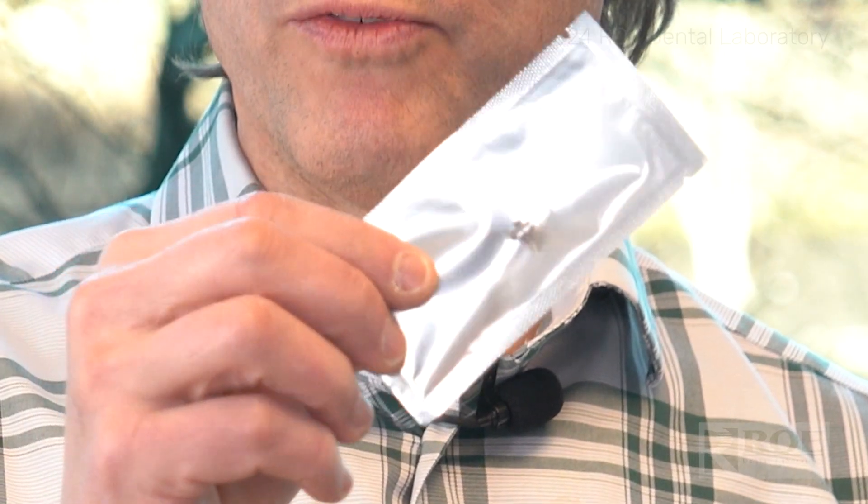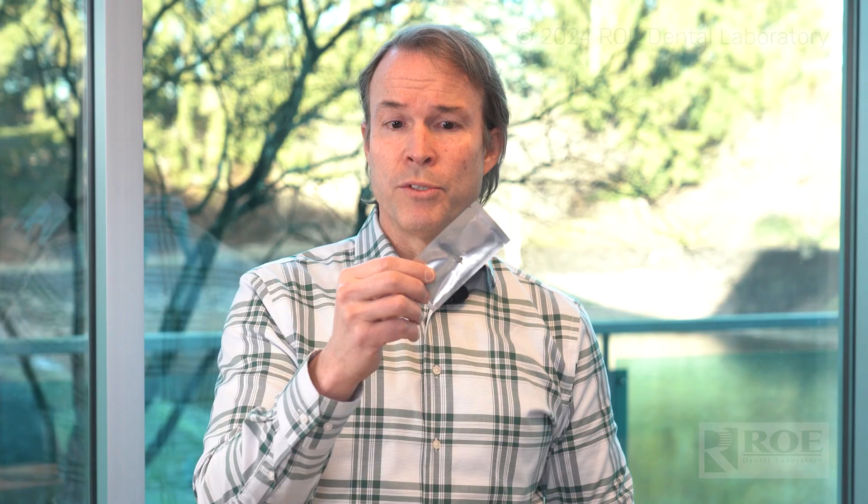This arch tracer is very creative and unique — it's a geometrical shape with a screw that's attached to it. You have a tool that grabs the geometry and you just turn it and push it right through the tissue and into the bone until it's fully seated. As you can see here or from the image on our website — just go to the shop — the geometry is very easy to scan and very easy to identify and register before and after surgery.